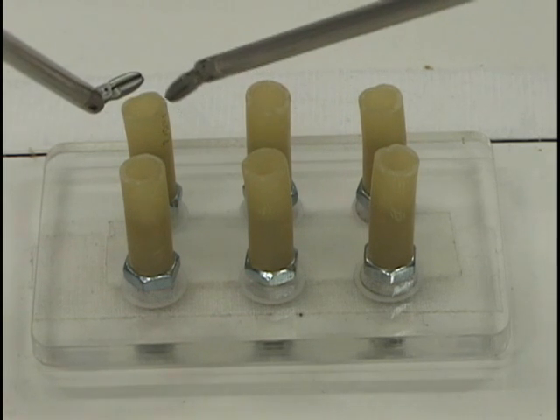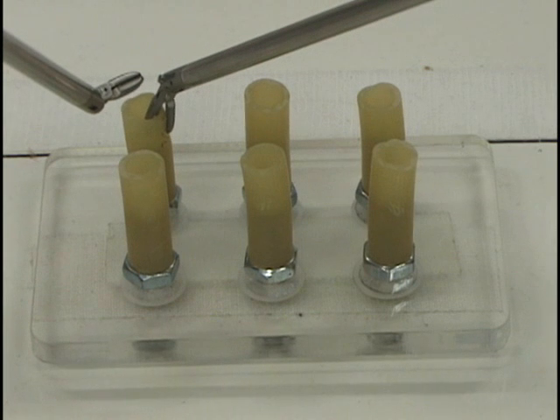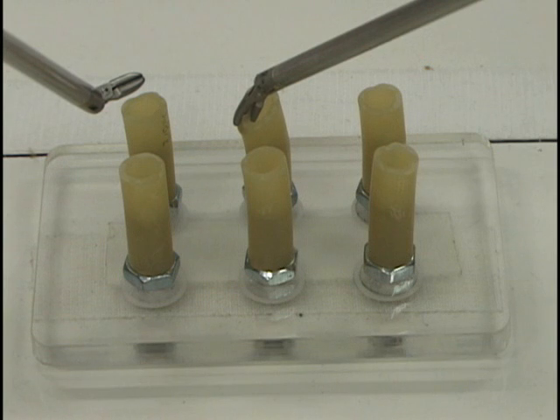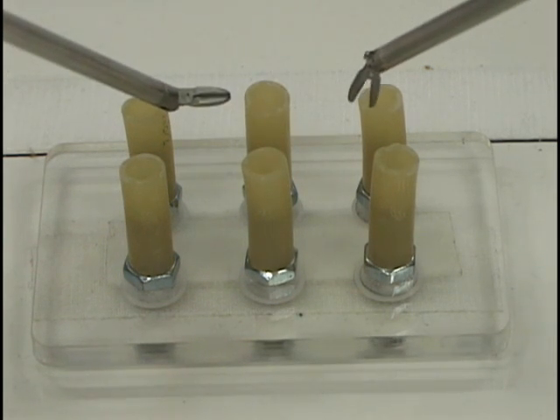Use your dominant hand to grasp the wall of each of the six rubber pegs, starting with the far left moving across the far row, then the near left moving across the near row. This task builds on the previous task, but now adds grasping and ungrasping.